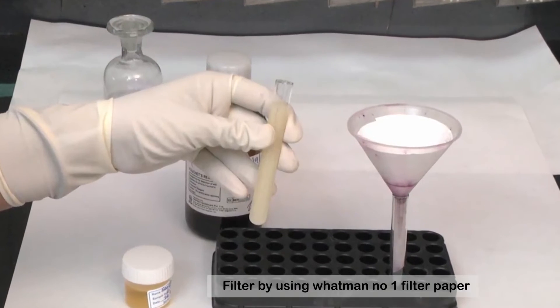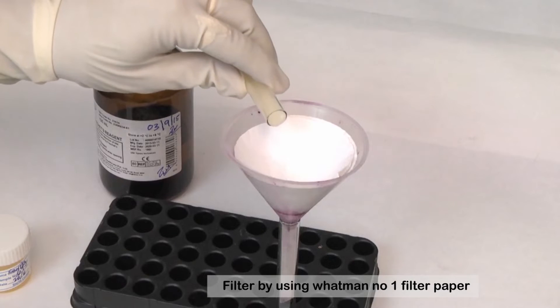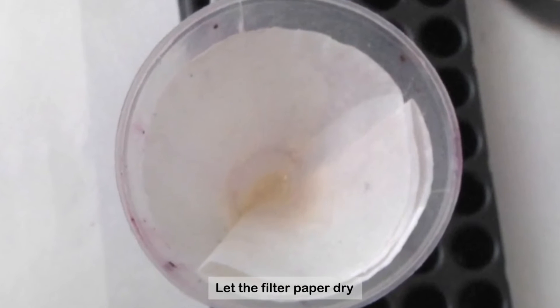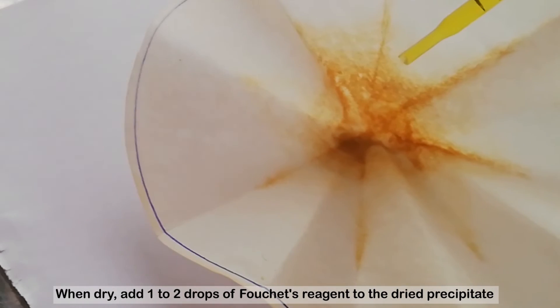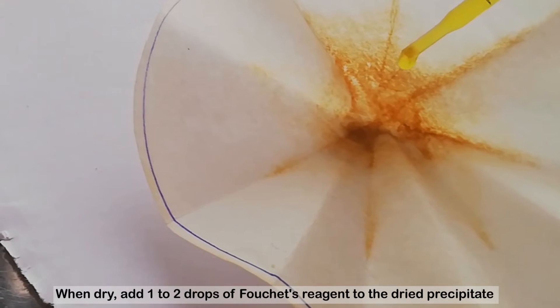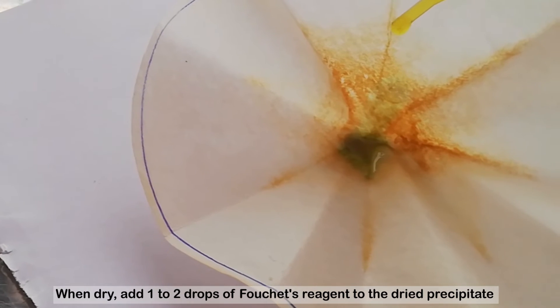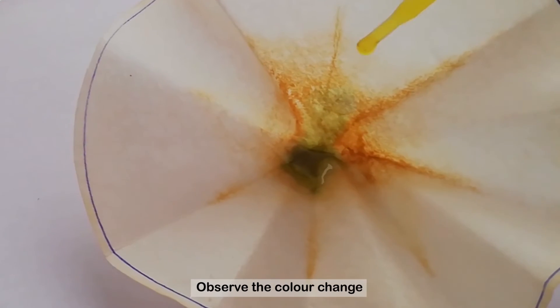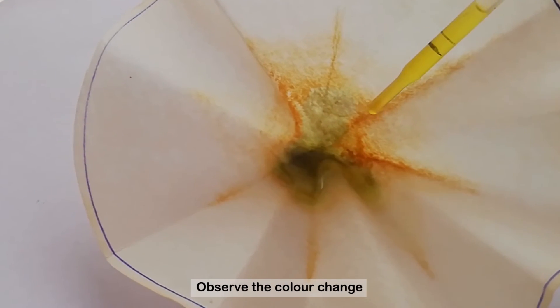Filter the mixture using Whatman No. 1 Filter Paper and let the filter paper dry. When dry, add 1 to 2 drops of Fouché's reagent to the dried precipitate. Observe the color change.